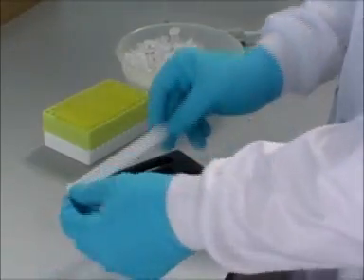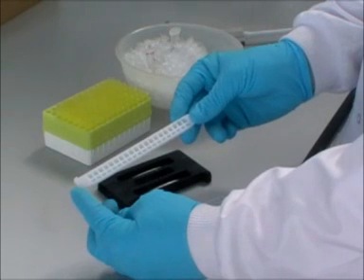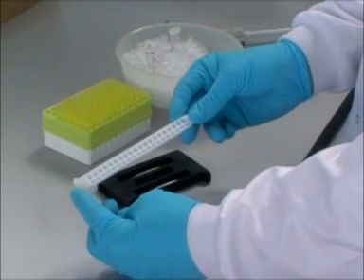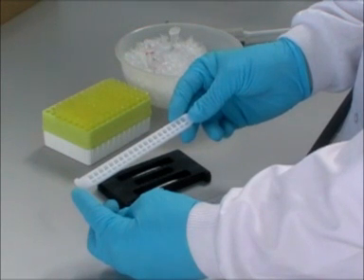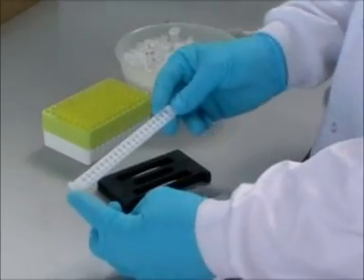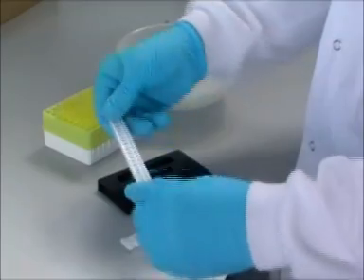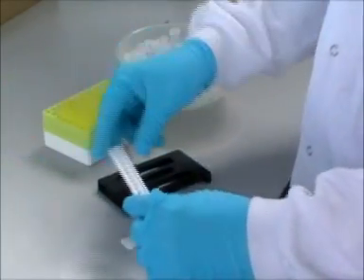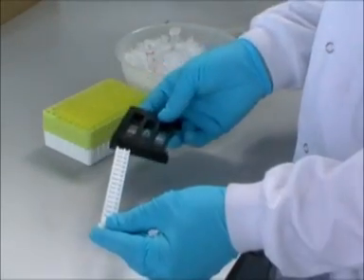The white sample trace strips are produced for various formats of the Helena units, with different sample capacities. The SAS 1 Plus unit takes 12 samples and therefore the strip needs to be shortened, as is being shown here, before being inserted into the holder.